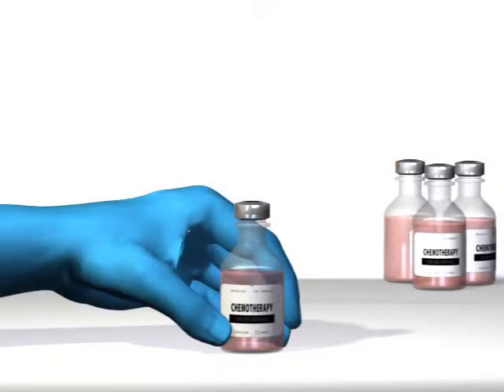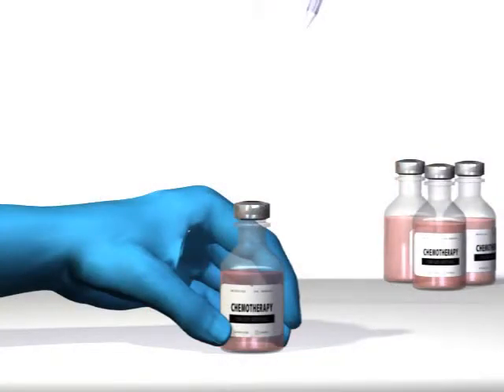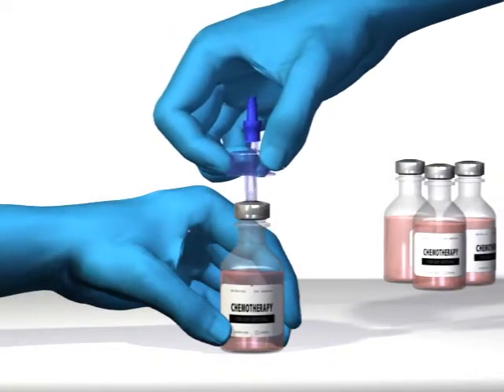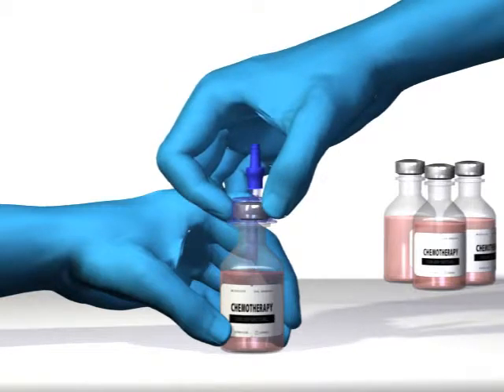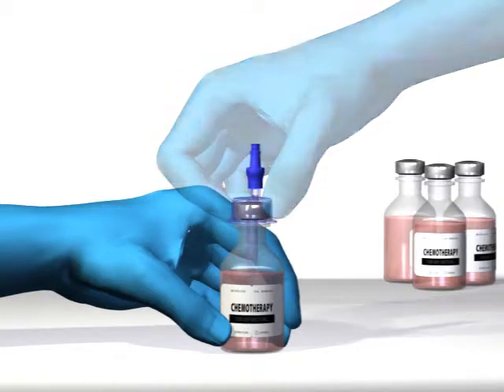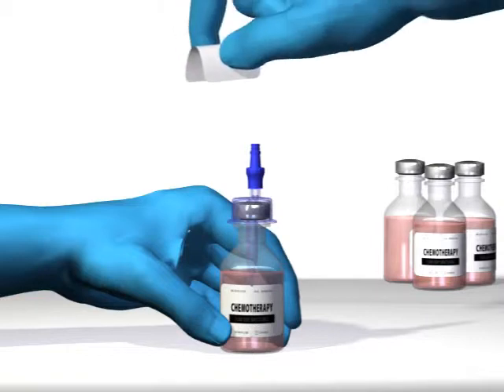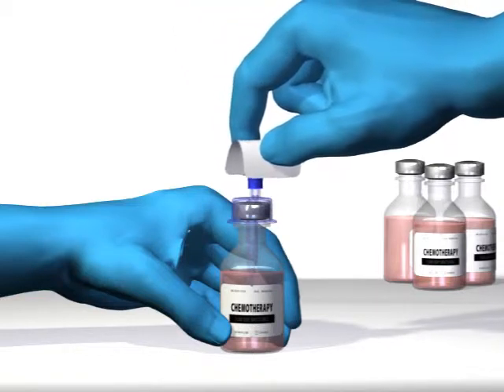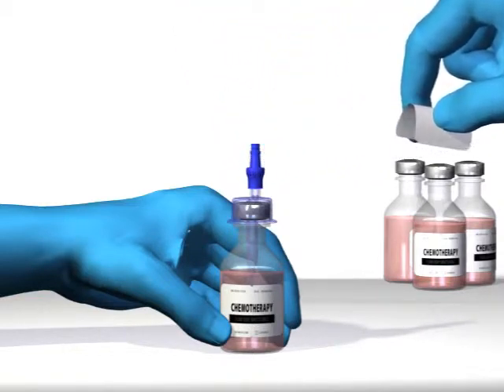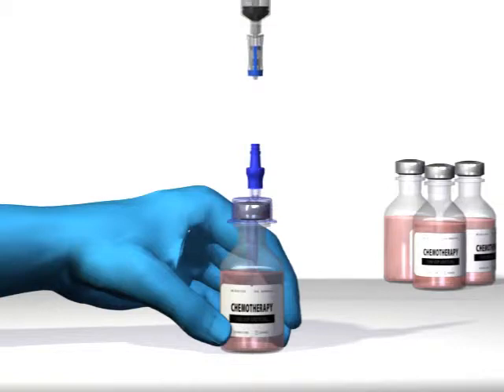The Genie is attached to the vial by pushing the pin through the stopper until the stability skirt locks onto the vial. To withdraw medication from the vial, swab the clave connector with desired disinfectant.